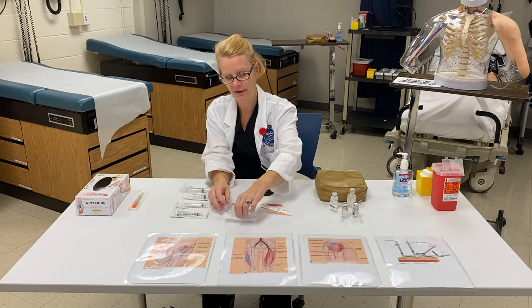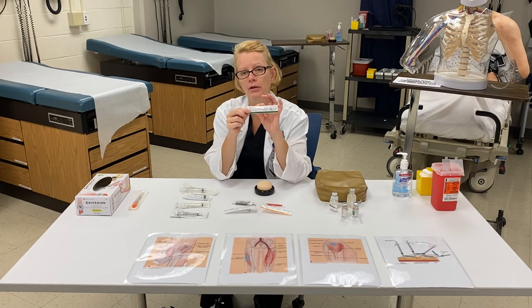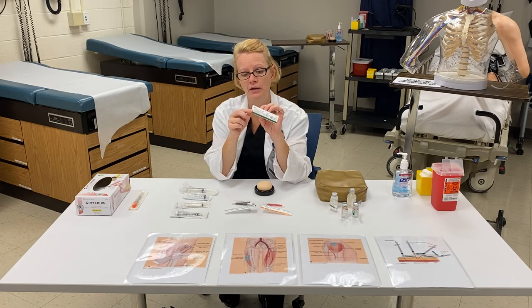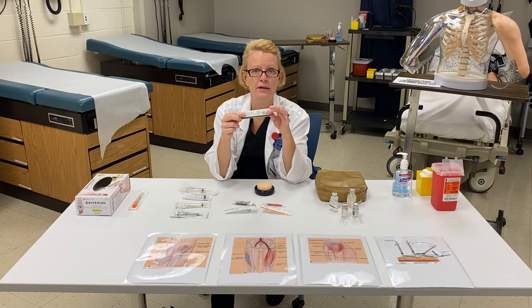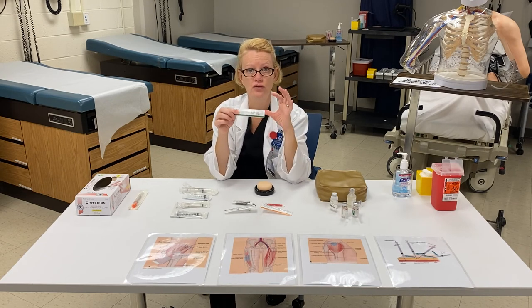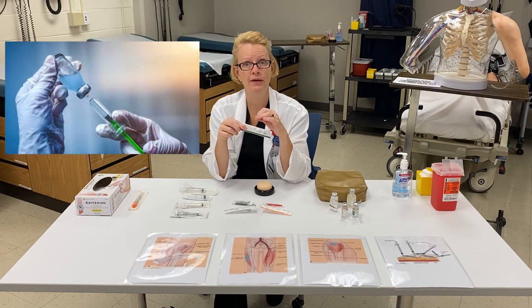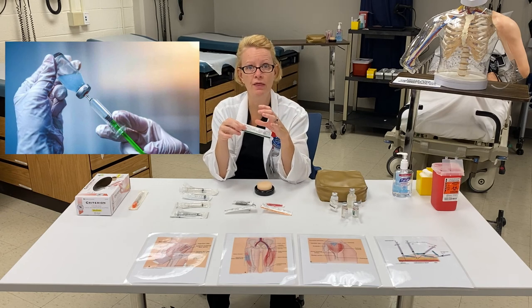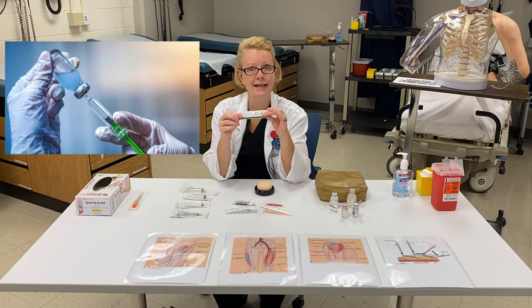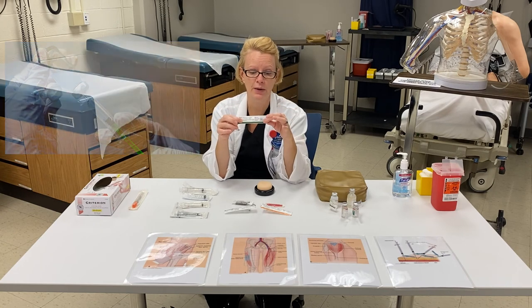The other needle I have here, which is also an intramuscular needle, has a little bit of a larger diameter — it's a 21 gauge needle, and this is a one and a half inch needle. Now why would I choose a needle that has a smaller gauge and larger diameter? It could be the viscosity of the medication I'm giving. Certain biologics may be quite thick, and if the medication is very thick, I may need a smaller gauged needle, but still keeping the same length for the muscle that I'm going into.